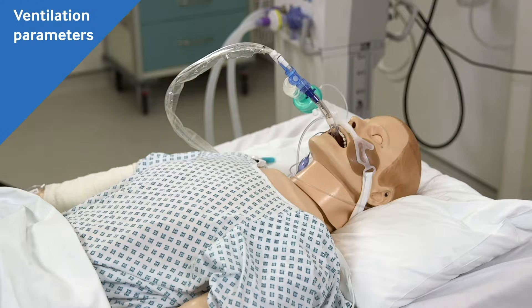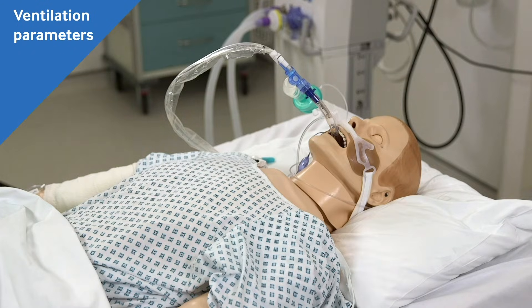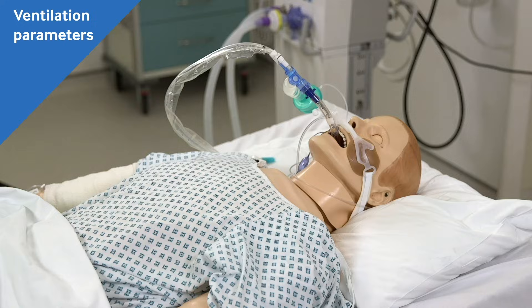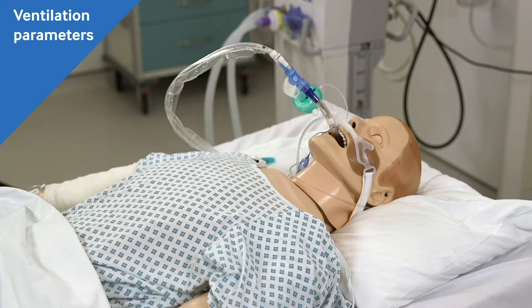We will look at how we can alter different ventilation parameters and what they mean. For the purpose of this video, we will assume that our patient is sedated and on mandatory ventilation.